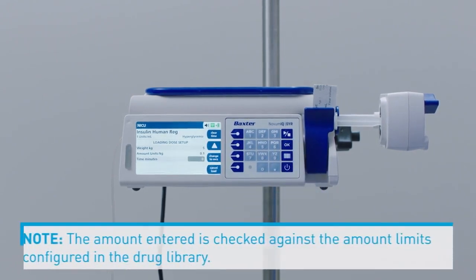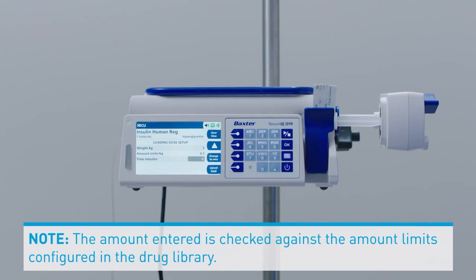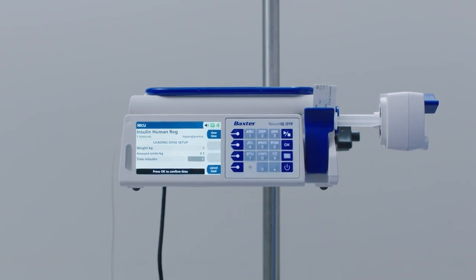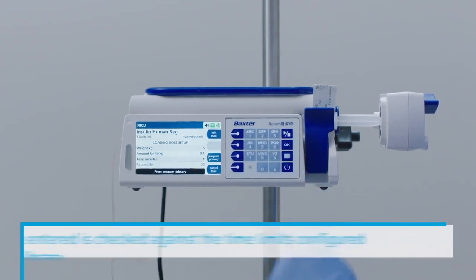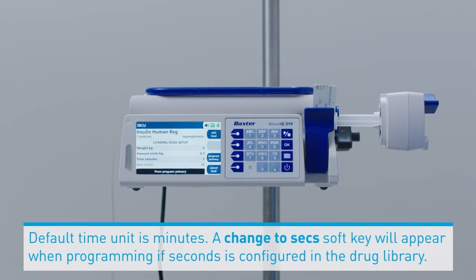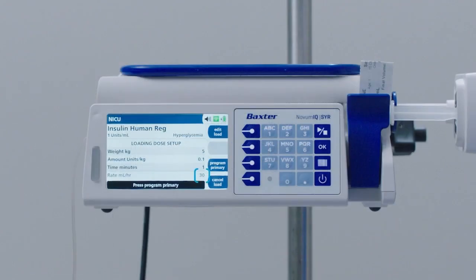Note: the amount entered is checked against the amount limits configured in the drug library. Enter the time of the loading dose as 1 minute. Press OK. Note: the time entered is checked against the time limits configured in the drug library. The default time unit is minutes. A change to SEC soft key will appear when programming if seconds is configured in the drug library. The calculated loading dose rate in milliliters per hour appears.